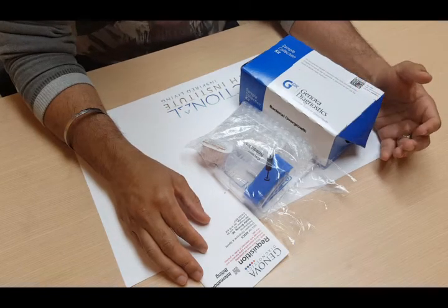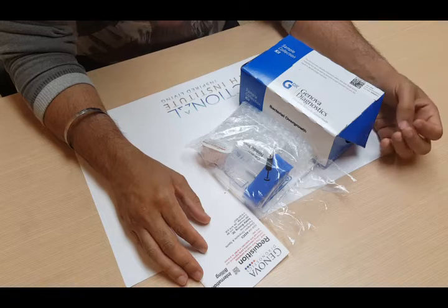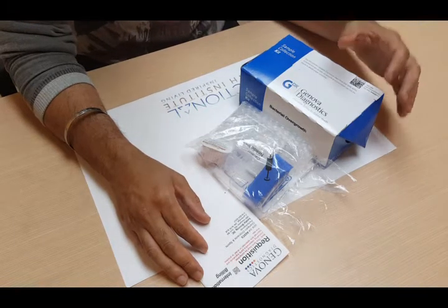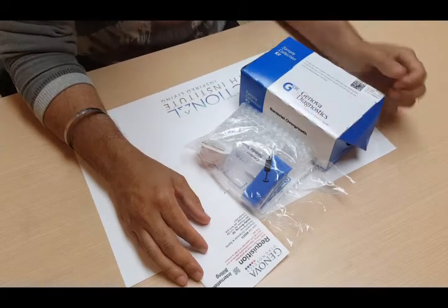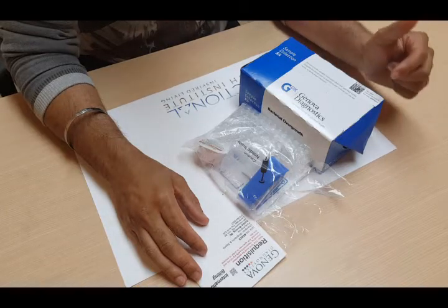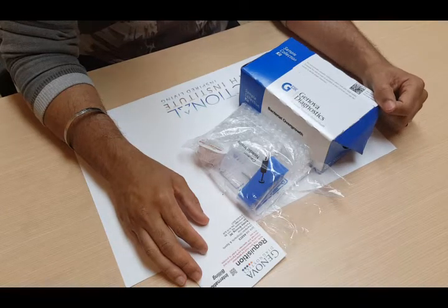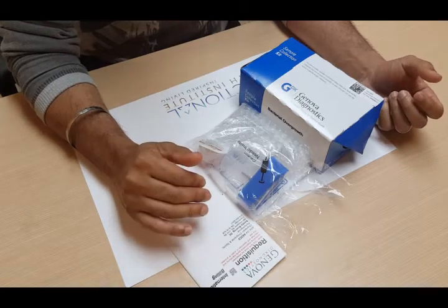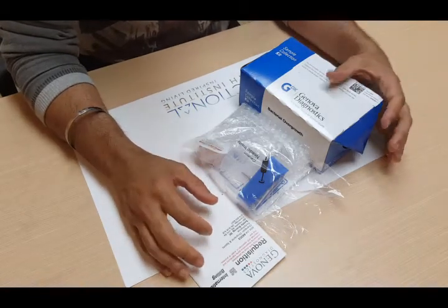Now, if you're on antibiotics or antifungals or Pepto-Bismol, you also want to wait at least two weeks from your last dose before you do this test. If you smoke, you can't smoke for at least an hour before you start this test, and you cannot go to sleep or do any exercise at least an hour before you do this test.